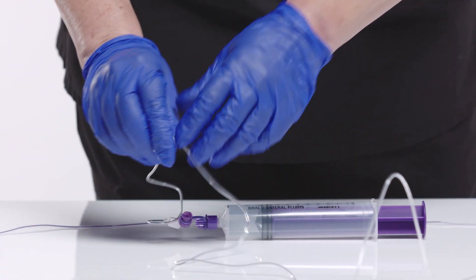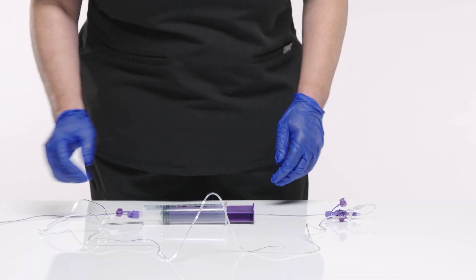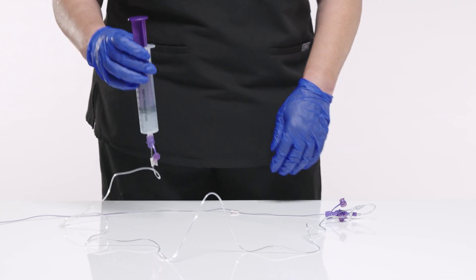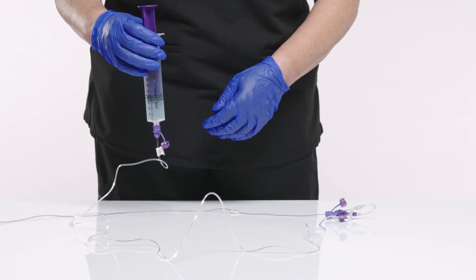Unclamp the extension set prior to starting a feed. Gravity feeding can also be done by using an EnFit syringe or gravity feeding set.